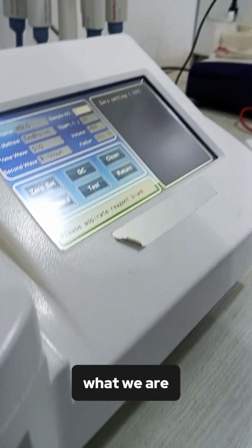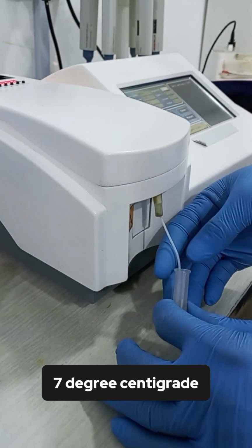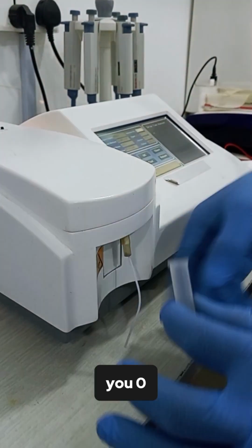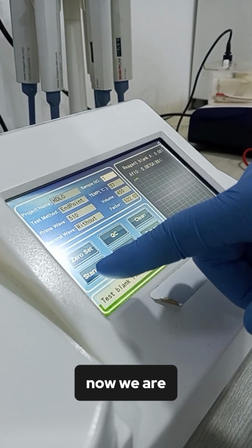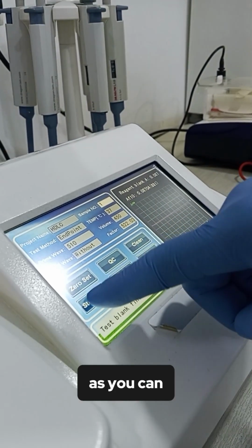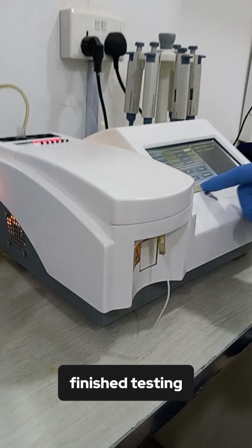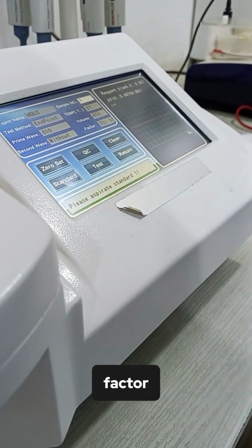Now we are timing at 37 degrees centigrade. You can see after you wash, you zero the machine. After you zero the machine, it will ask you to aspirate reagent blank. Now we are testing blank. As you can see, we are testing blank. Now blank has finished testing. Now you click on standard to generate a new factor. We want to generate a new factor.